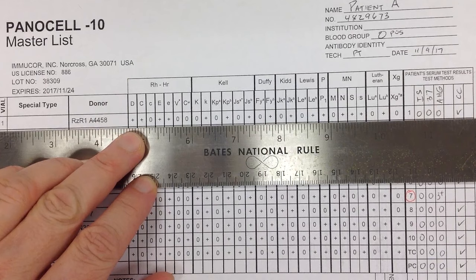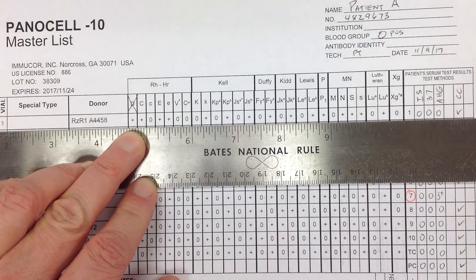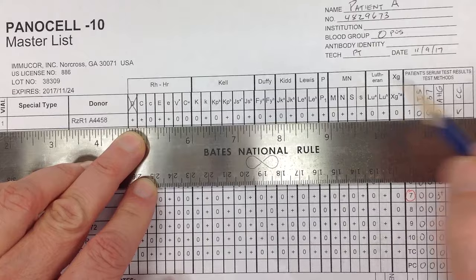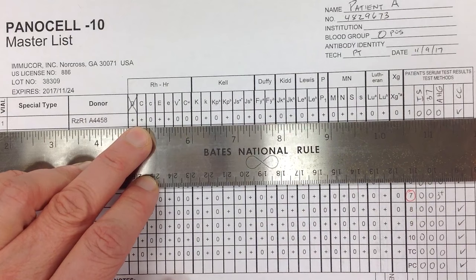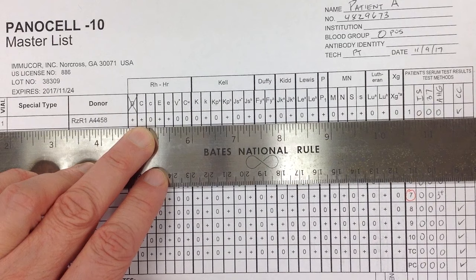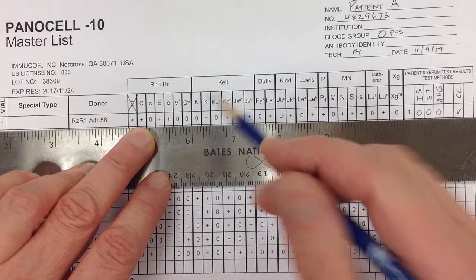With D, since it's by itself, I know that's a strong expression — I'm going to do a double cross or X, indicating there's no way our antibody can be big D since this cell is negative for it and it's a strong homozygous expression. For big C, it's homozygous and the cell is negative, so we completely cross that off. For big E and little E, I can't double cross them — I'm going to single-cross them because it's a heterozygous expression and may be weakened, but there is some positivity of some kind.